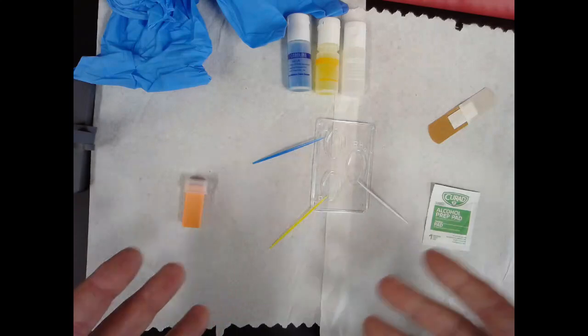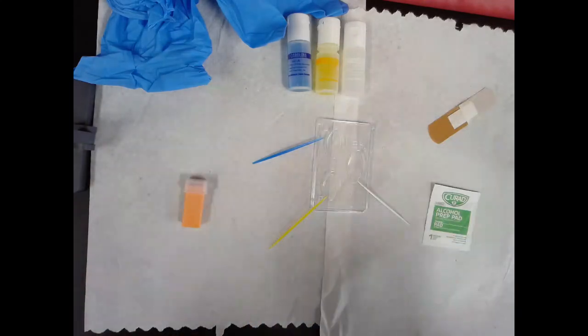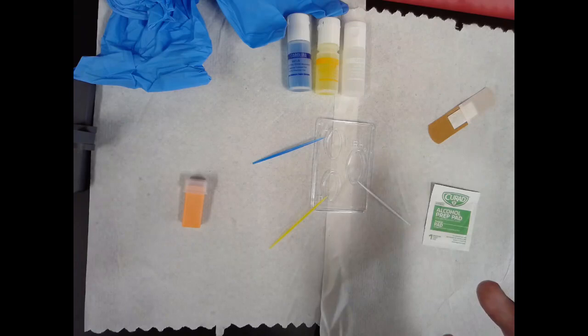Hello, welcome to Anatomy with Babish. Today we're going to go for blood typing. I'm just joking, please don't sue me. Welcome to Anatomy with Mr. M or Mr. Mullally. It's been a while since I've recorded a video for YouTube or done a demonstration, but I want to do just a really quick rundown on how to do blood typing.